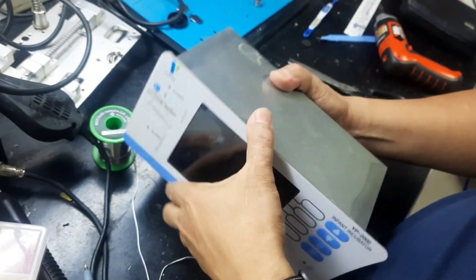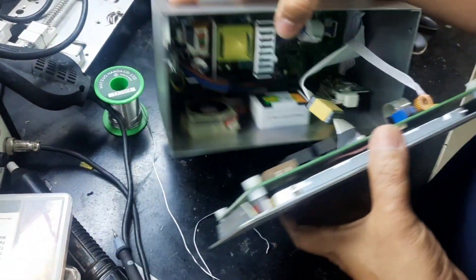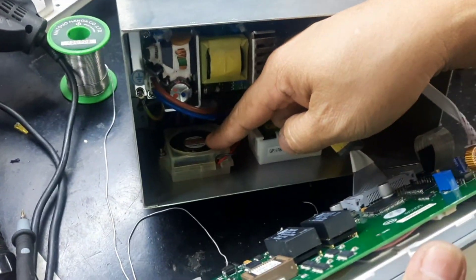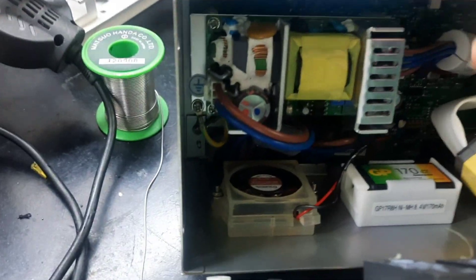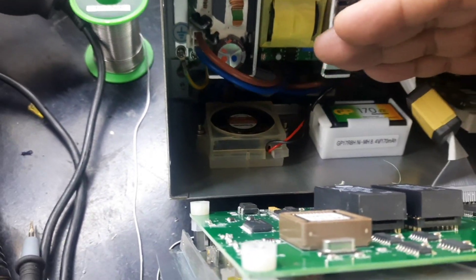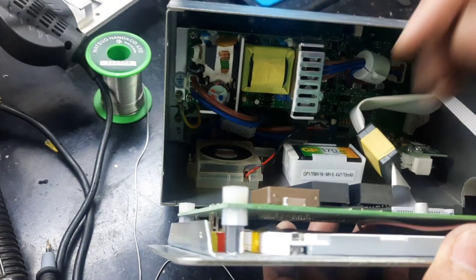Still working. Even me also, I'm not... The fan is still working. See, this is the fan. The flow of the fan should be going inside of the board. If you put it reverse, it will alarm. The fan one. You have to change it.